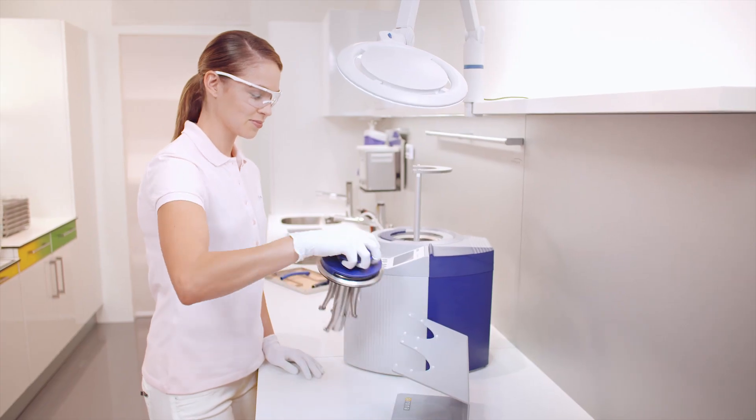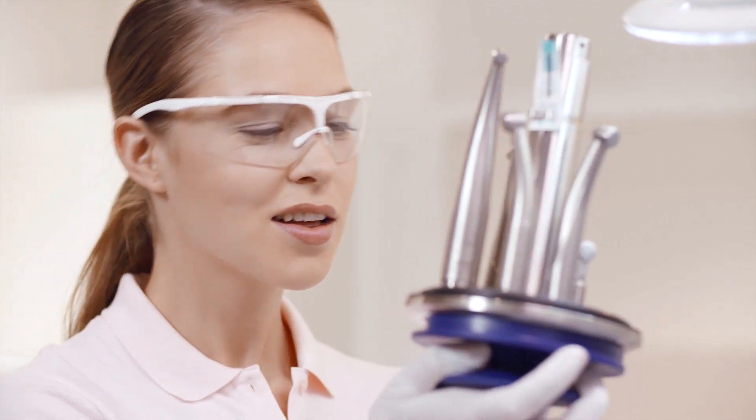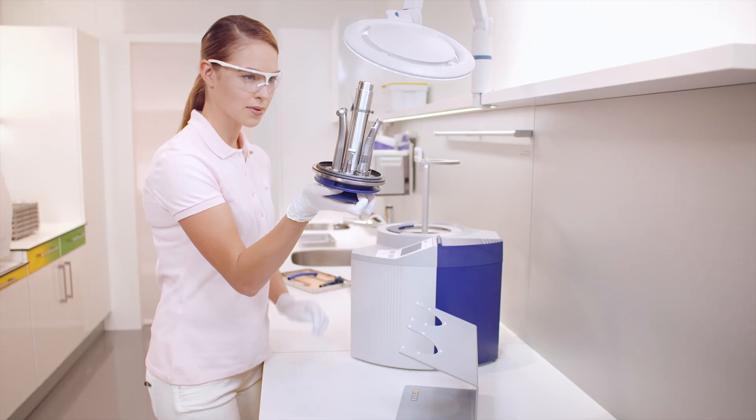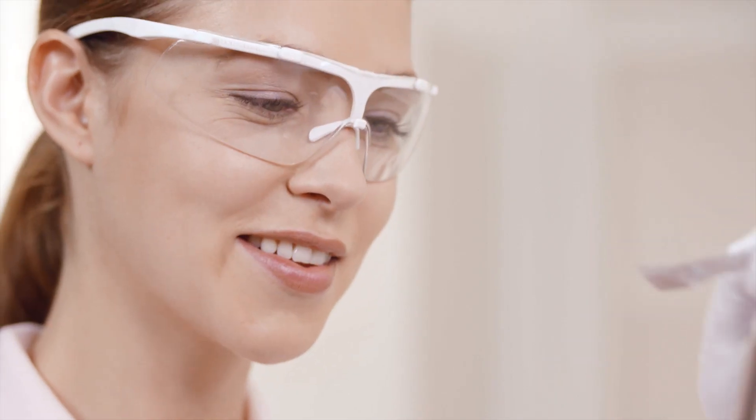Check the result. Are all the instruments still attached to the lid correctly? Have they been optimally cleaned? If the control bar of the chemical indicator displays Accept, everything is OK.